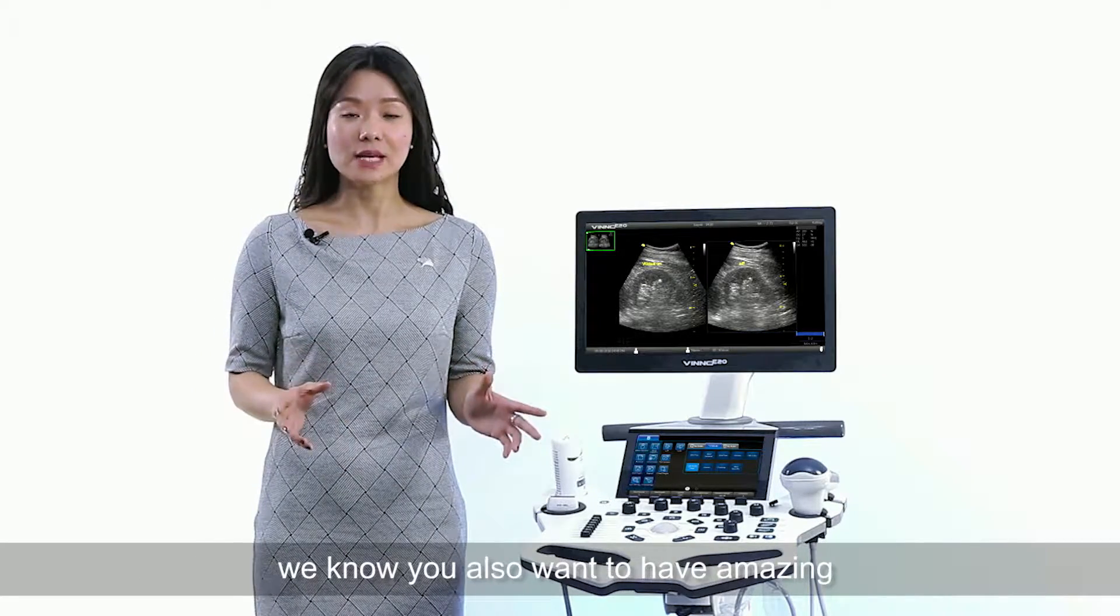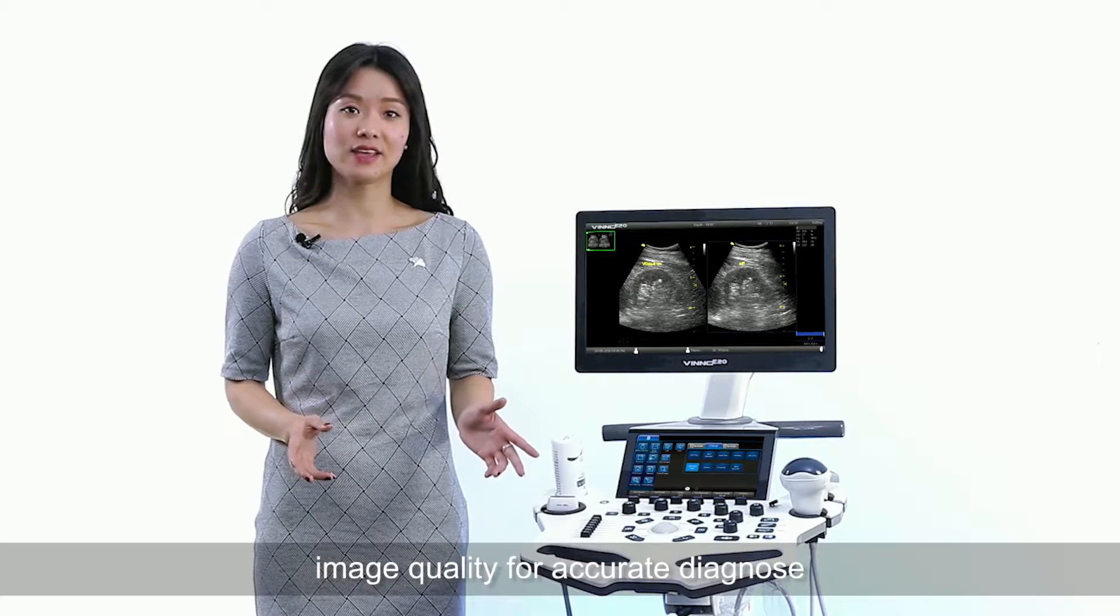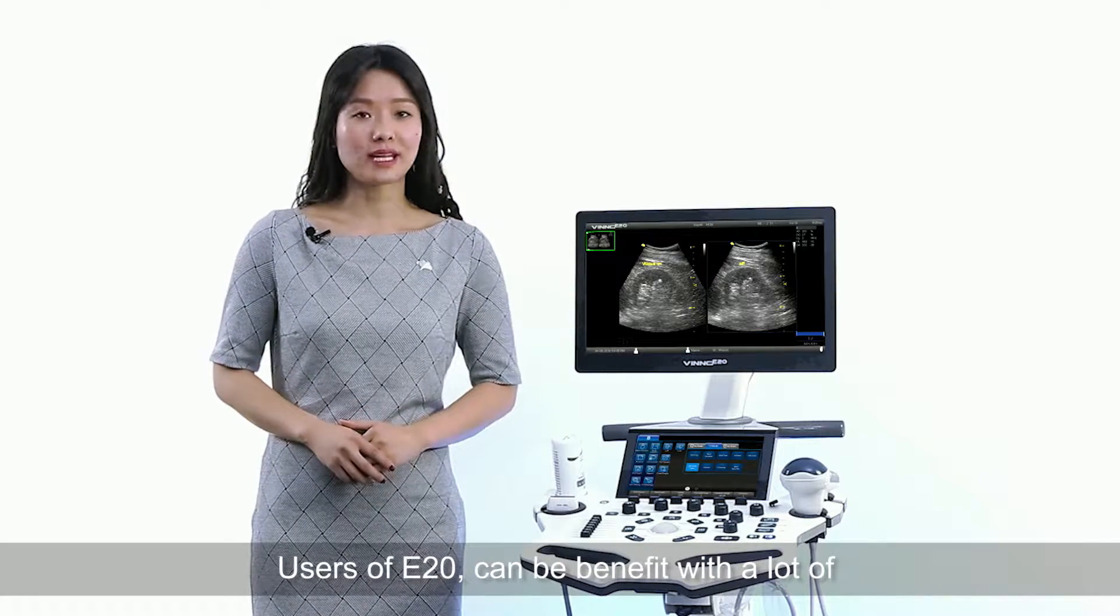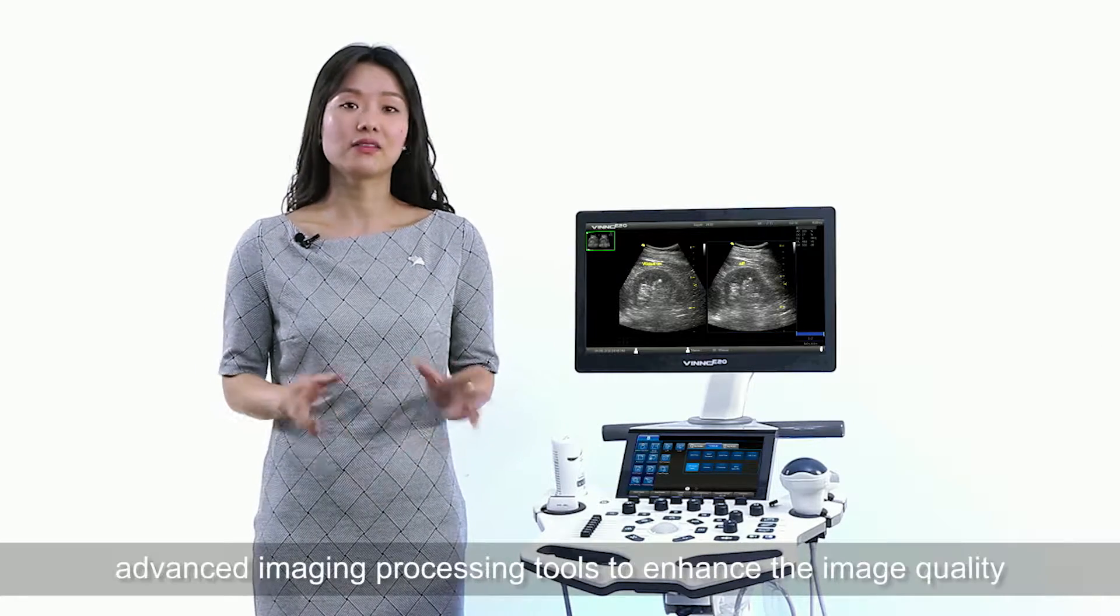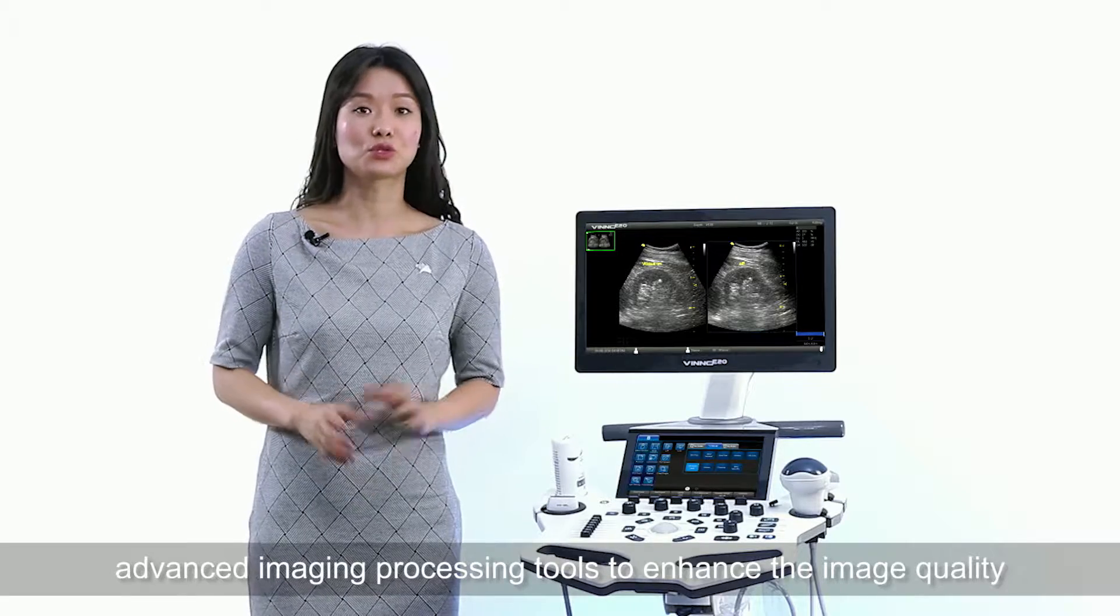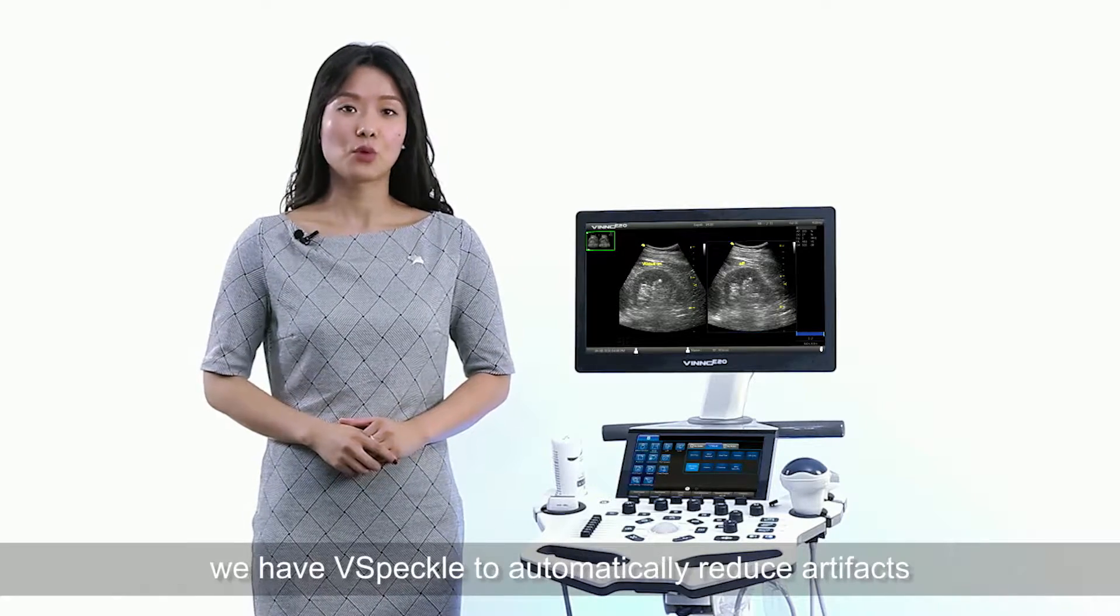we know you also want to have amazing image quality for accurate diagnosis. Users of E20 can be benefited with a lot of advanced image processing tools to enhance image quality.